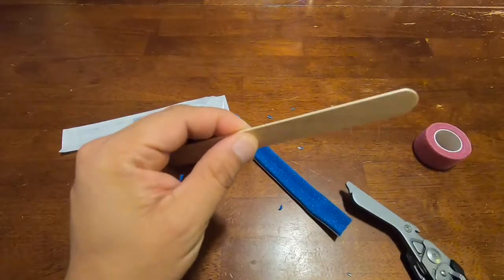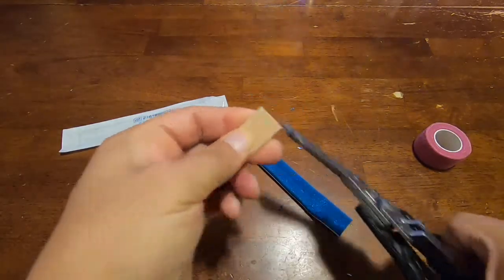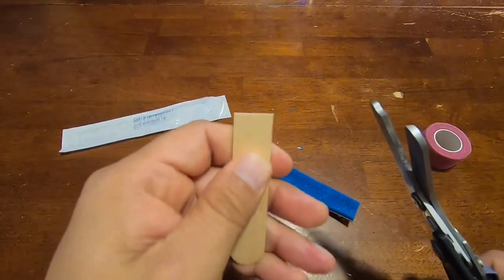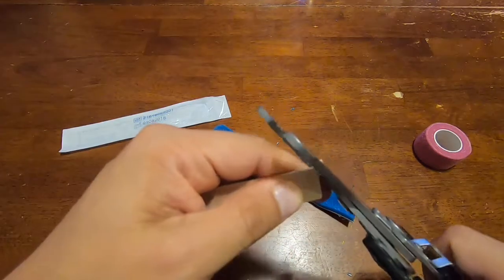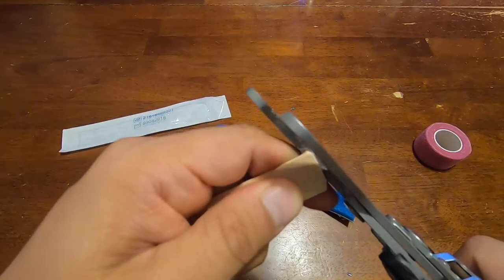Again, cut it where you need it, and there's that sharp edge again. You see there's that sharp edge that we don't want cutting into the skin. So same thing here, you just cut the edges, round the edges off.